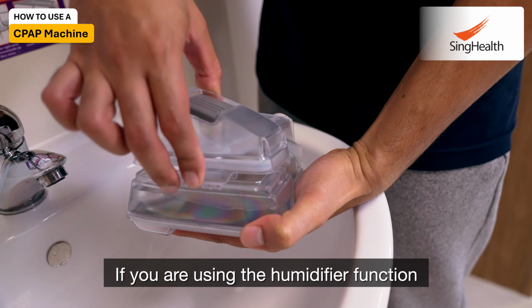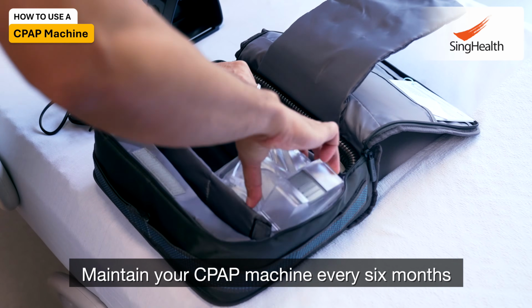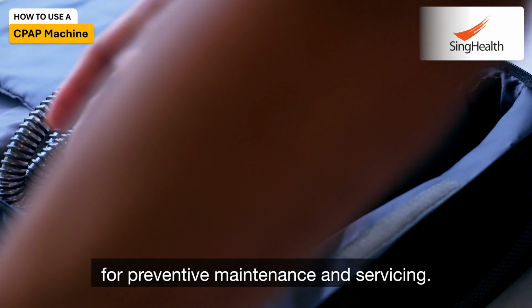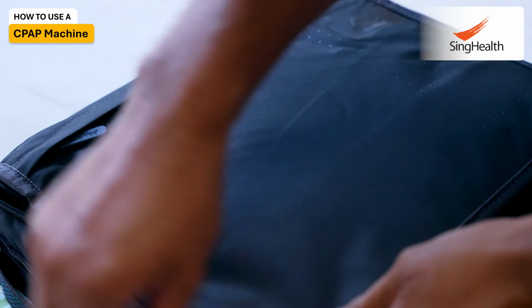If you are using the humidifier function, remember to change the water daily with normal tap water. Maintain your CPAP every 6 months by bringing it to your vendor for preventive maintenance and servicing. These tips will allow you to use your mask and machine for a long time.